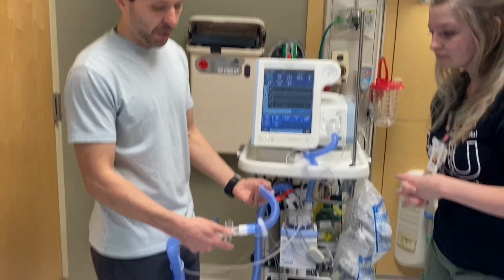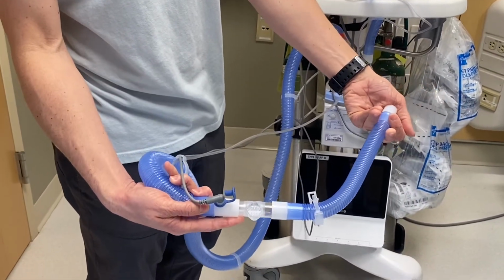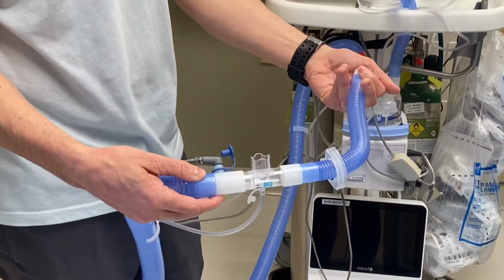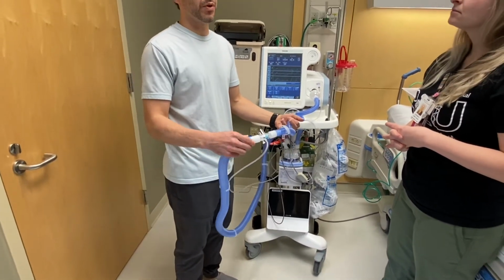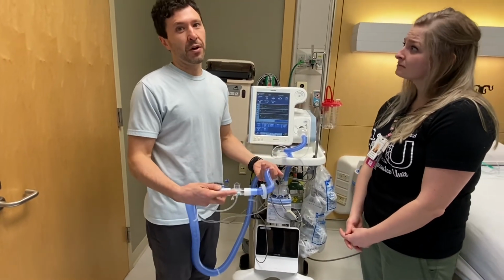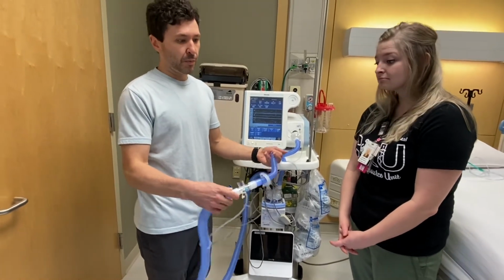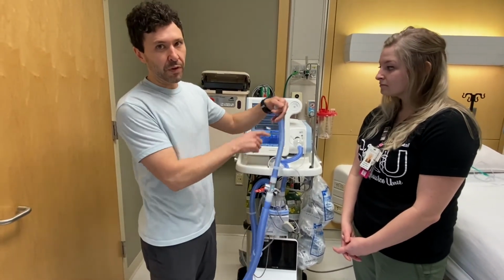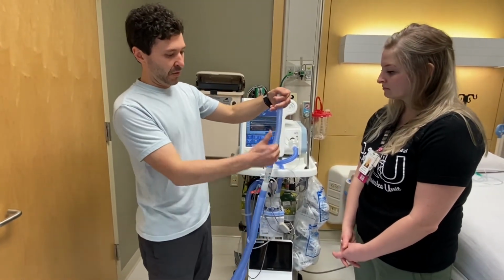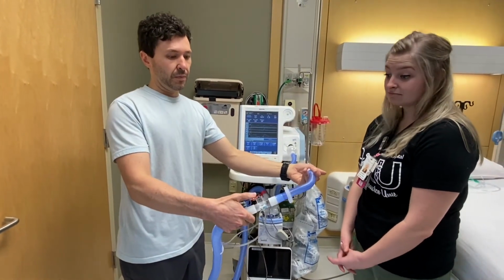This is your exhalation port. So the patient is exhaling out of that. And you can see there are fenestration holes in there. Don't ever let that get covered. Don't let the blanket be on that. Don't let anything be on this, because this is where their CO2 comes out. If this is occluded, think of a non-rebreather on a low flow. Same principle applies. Their CO2 is going to hang in this tubing. Since BiPAPs aren't real ventilators, they don't have an exhalation line like a vent does. Everything would stay in here. So CO2 would build up in this area and it would just go right back to the patient. So never let this be occluded, ever.